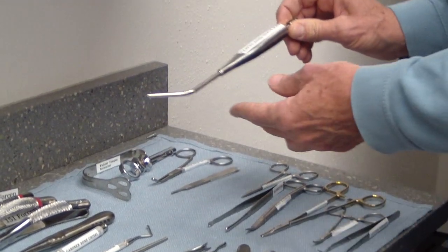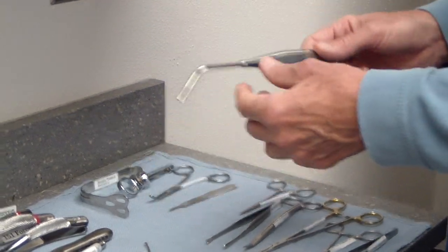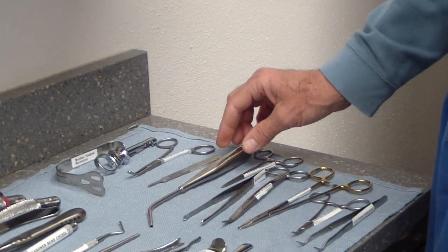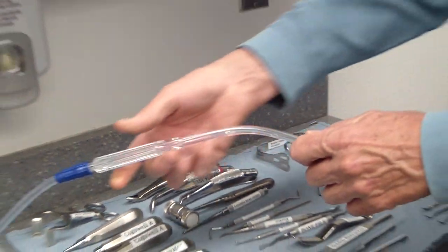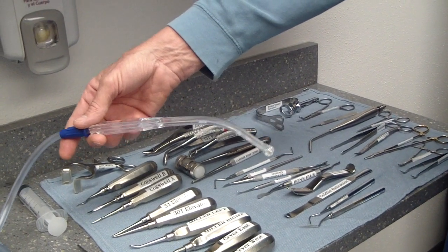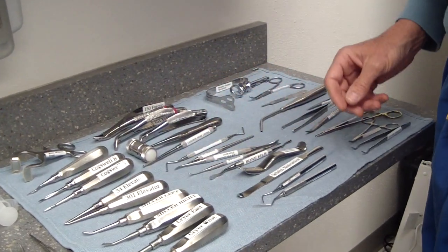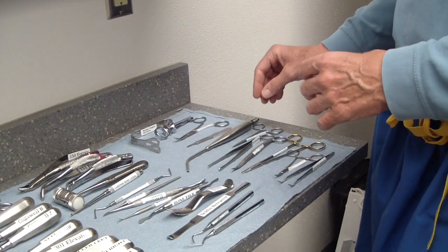This is our Copeland suction, which I use for surgical suction. It has a narrow tip good for getting down inside tooth sockets. It's a little slow if you're really irrigating with large amounts of fluid and it backs up, so in that case we switch over to the Yankauer — the acrylic one — which will suck up about four or five times faster. It'd be nice to have both at the same time.